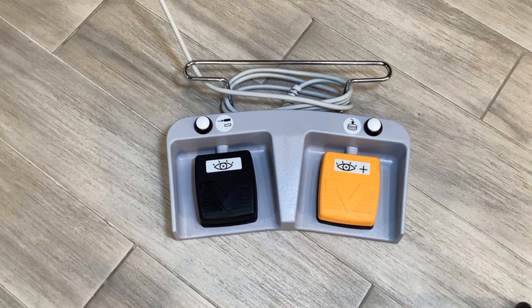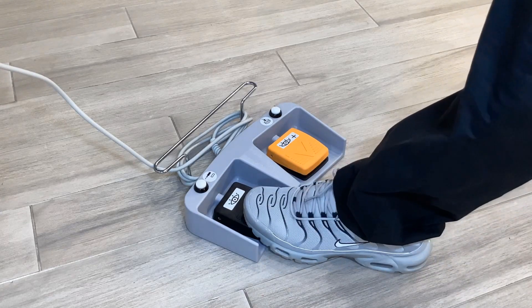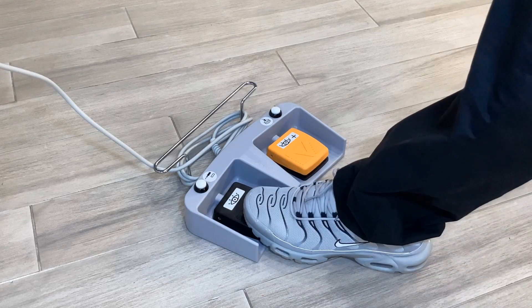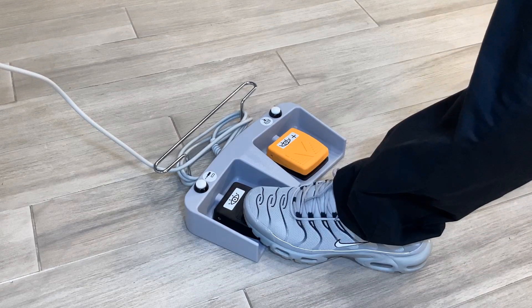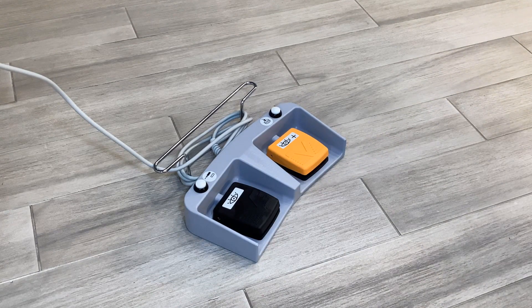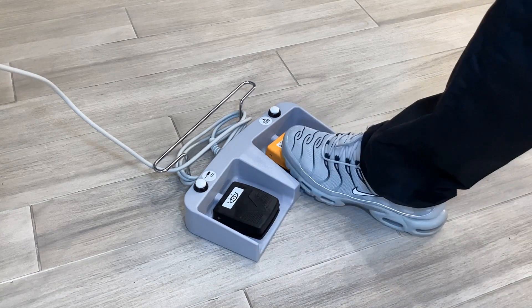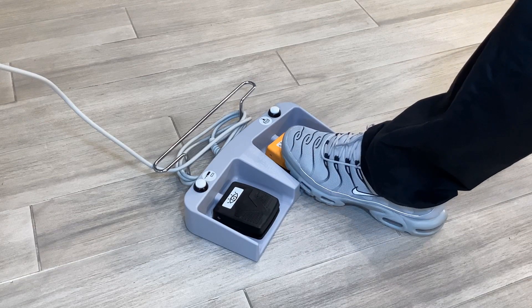The footswitch. Press the left black button labeled with the eyeball to produce normal fluoroscopic images. Press the right yellow button labeled eyeball plus to produce high level fluoro or digital spot images.